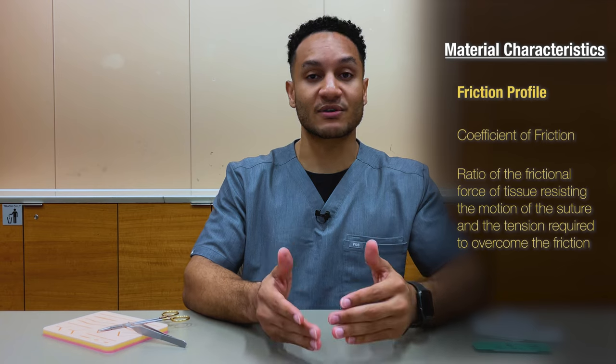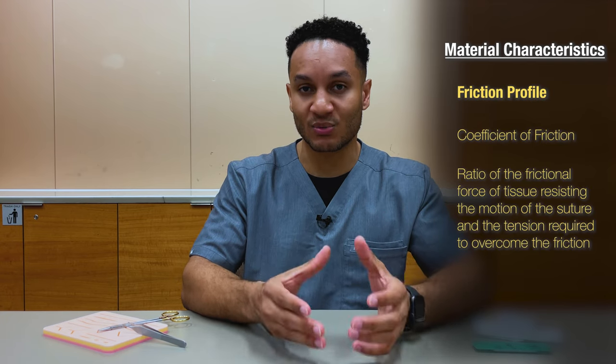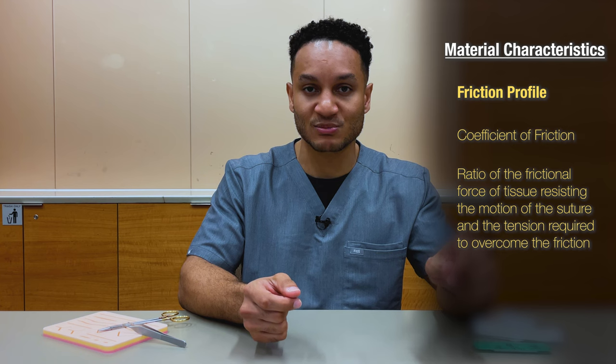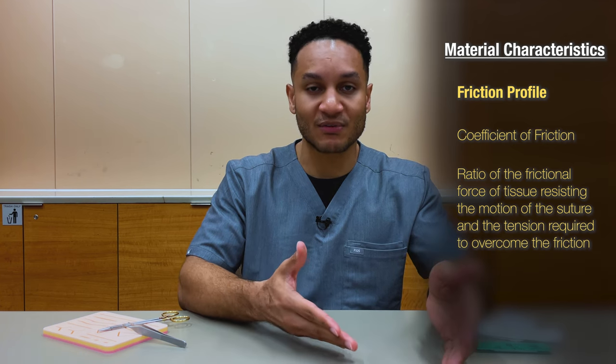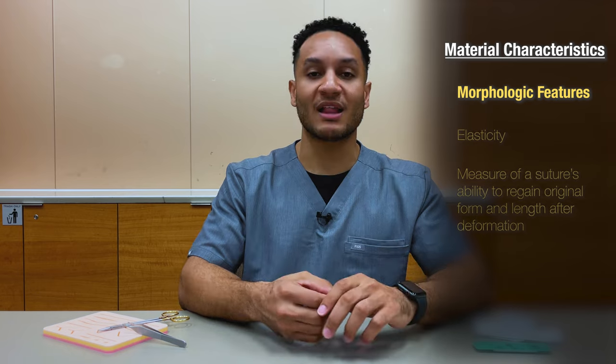Consider the coefficient of friction — how much friction or drag is applied to a wound once you're dragging the suture material through it. In general, monofilaments have lower friction; polyfilaments have a higher coefficient of friction. You also want to consider the elasticity, plasticity, and memory of a suture.